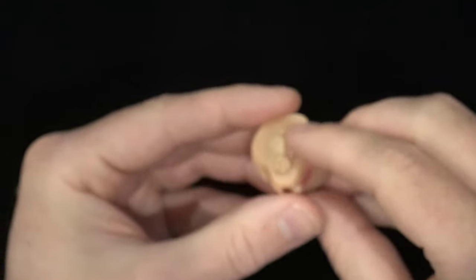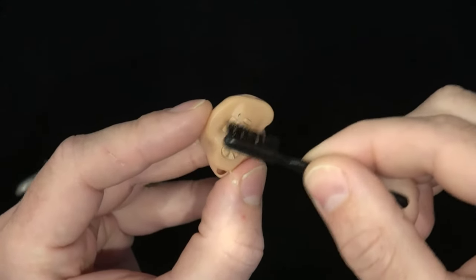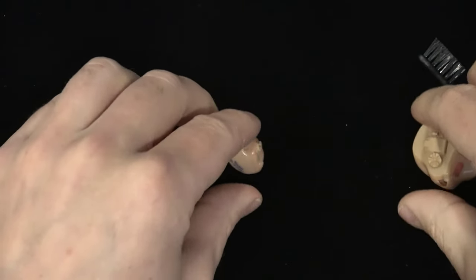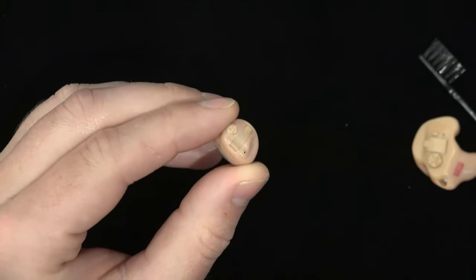If you don't have a mic filter, or if you have a mic filter that can't be removed, use the same method as with the behind-the-ear hearing aids — simply brush over the openings and the ports to clean off and remove any buildup of debris. But if you have a mic filter that can actually be removed and replaced, then these need to be replaced on a regular basis, just like your wax guards.